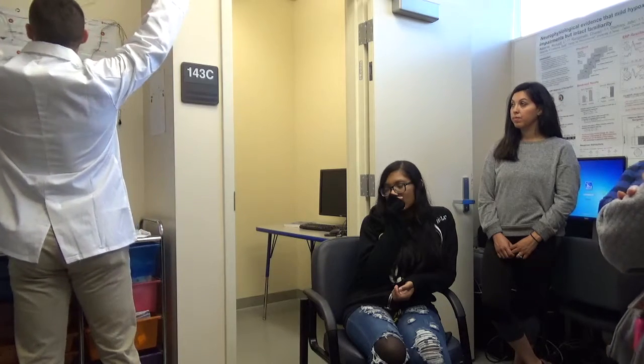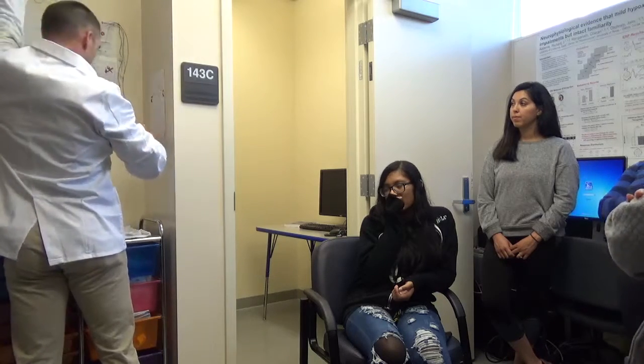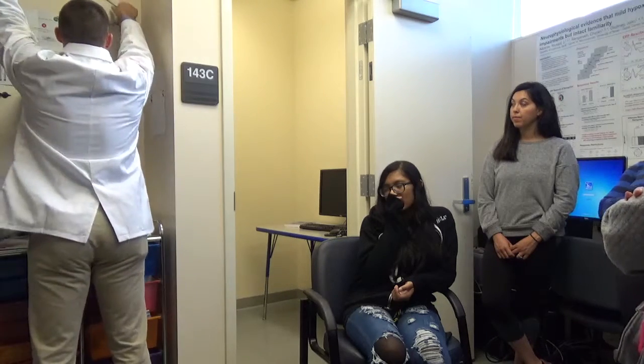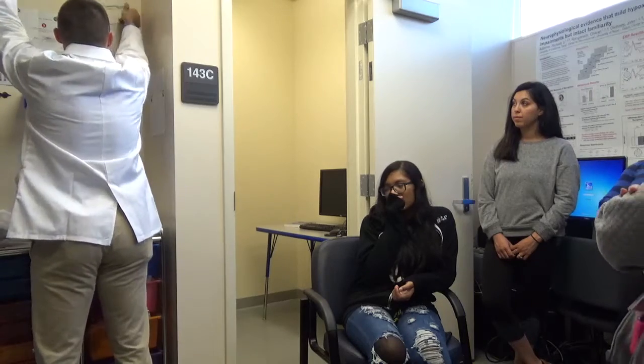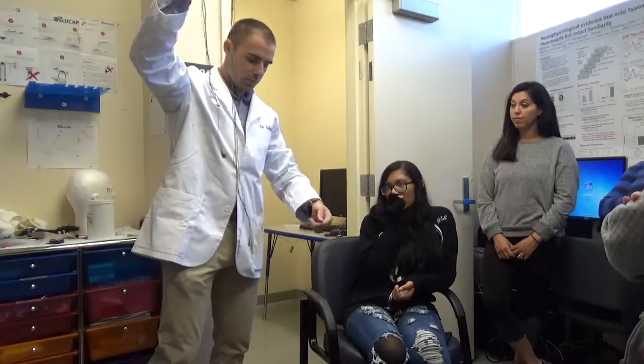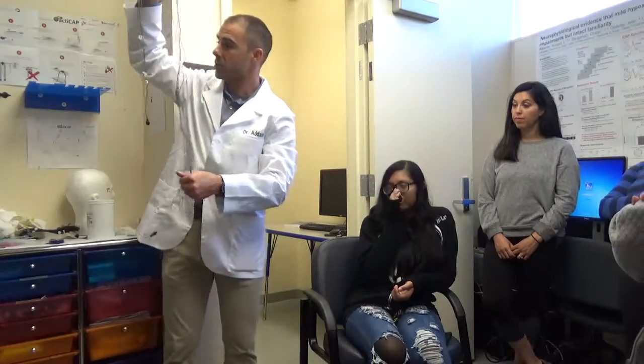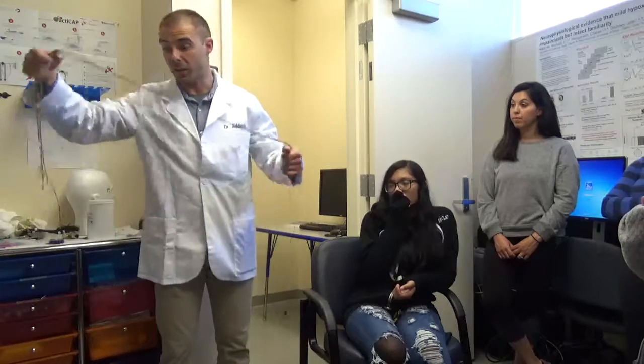Let's see here. We keep these electrodes over here, and these are ocular electrodes. Okay, so you don't really want these bottoms of the electrodes to touch the ground, and they generally won't unless you don't pay attention. One way that I like to help do that is I'll kind of hang them around my neck like this. And it's just not entirely foolproof, but it's a good sort of stopgap.